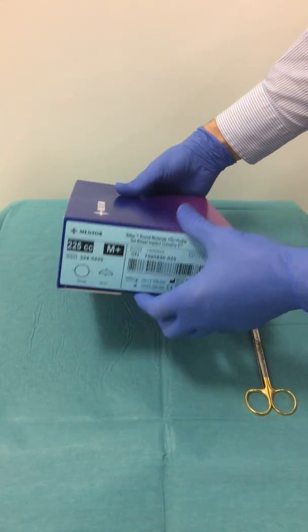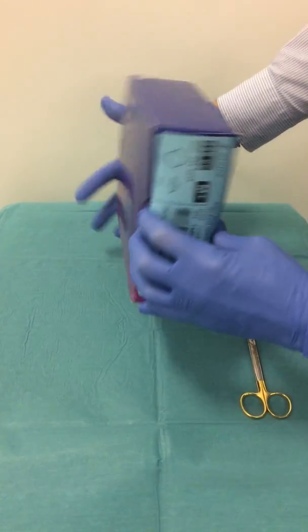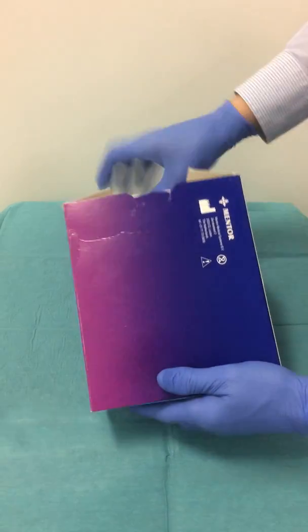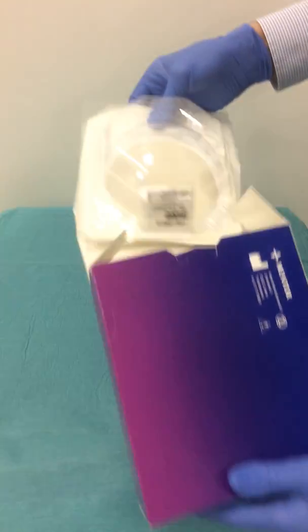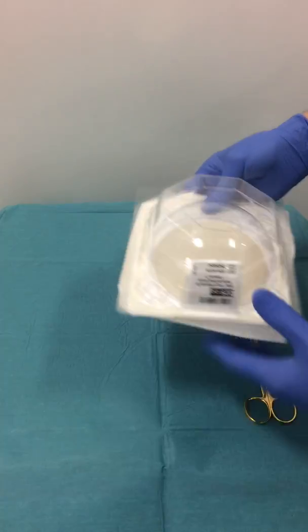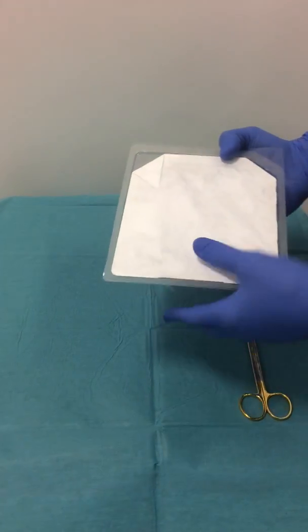I've got an implant here which I'm going to take out of the box. This is a very good quality Mentor implant. This is how it comes. The outside packet is taken off.